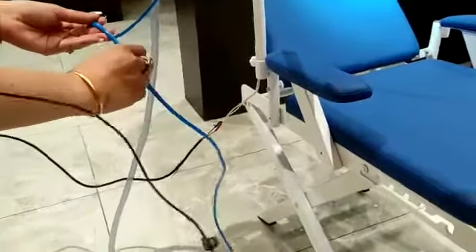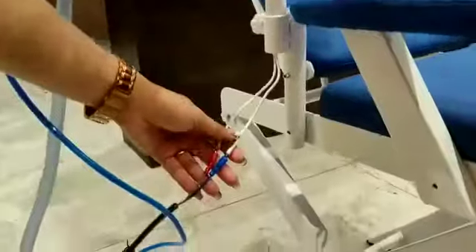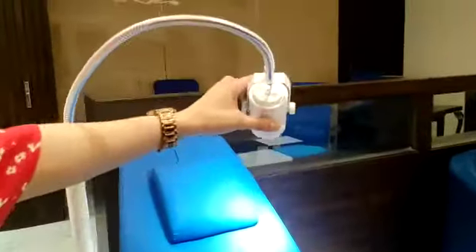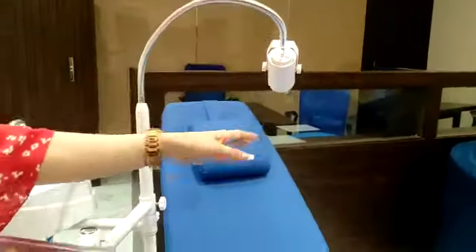This pipe is actually connected with the tap. The wires for the LED go underneath — it can be connected here and attached to a switch. This is the LED headlight, which can be focused.